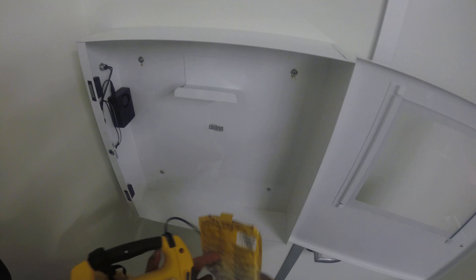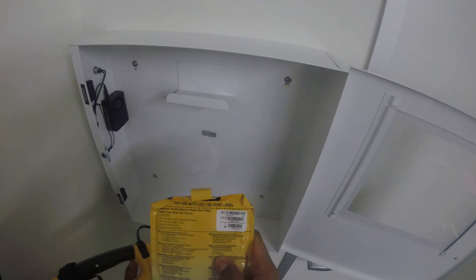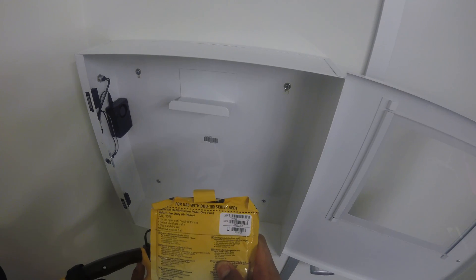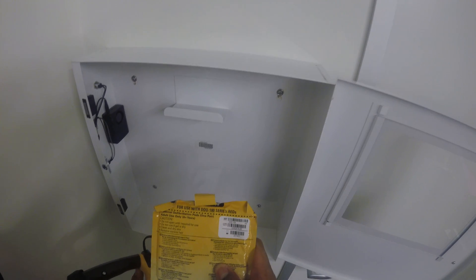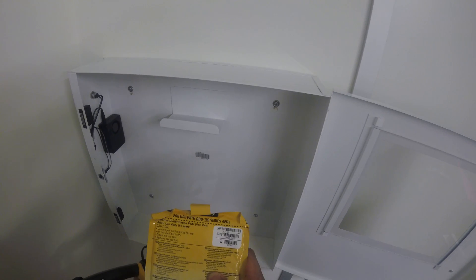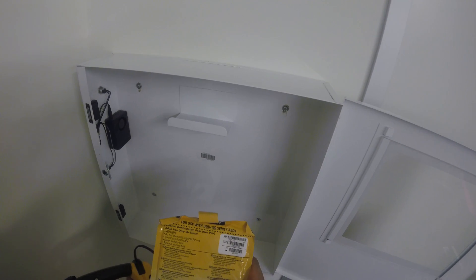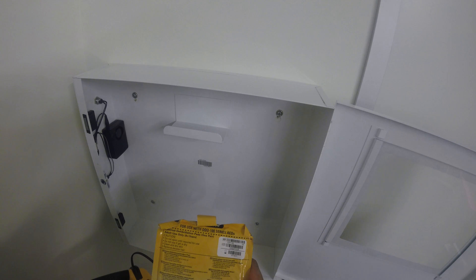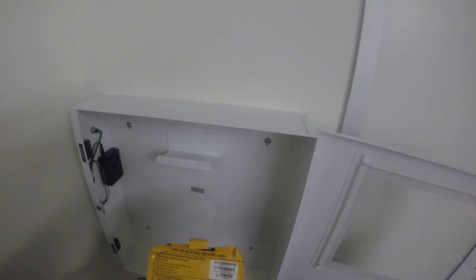The expiration date on here is 1/18, so these need to be replaced relatively soon because this is coming up in the next few months.